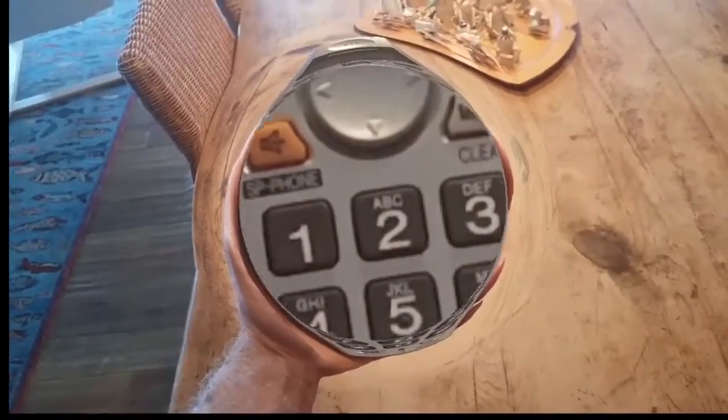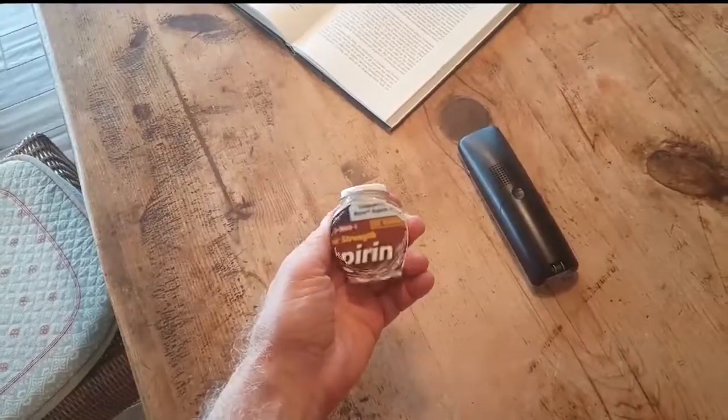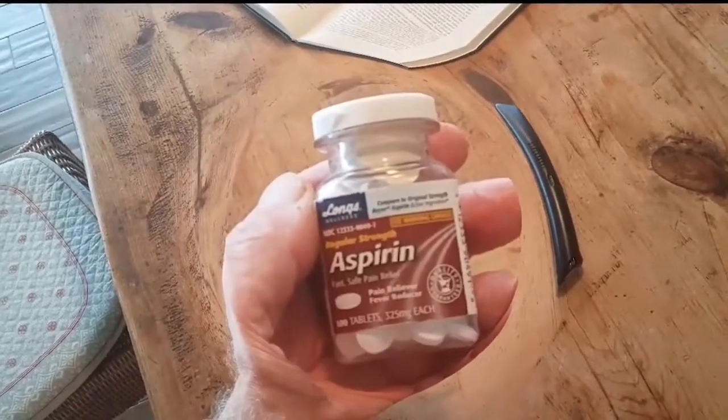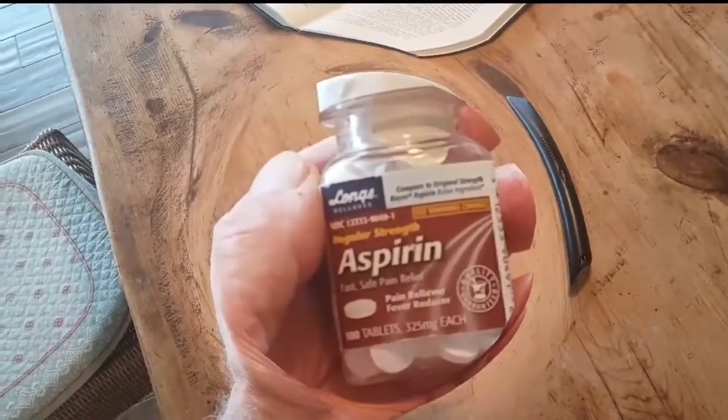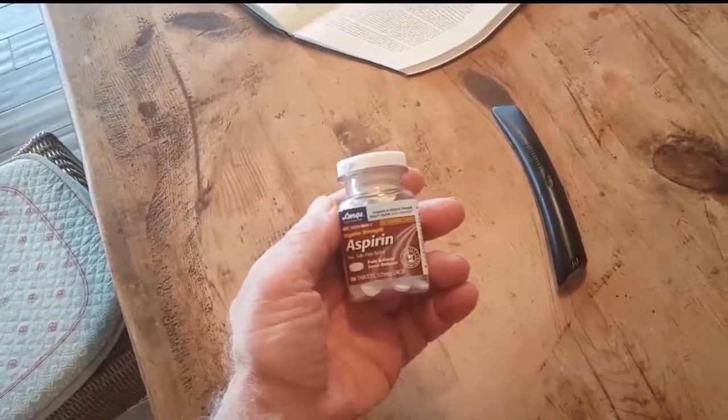Here is an expanded aspirin bottle so that you can even read the dosage. You can also read online digital media, such as the New York Times.